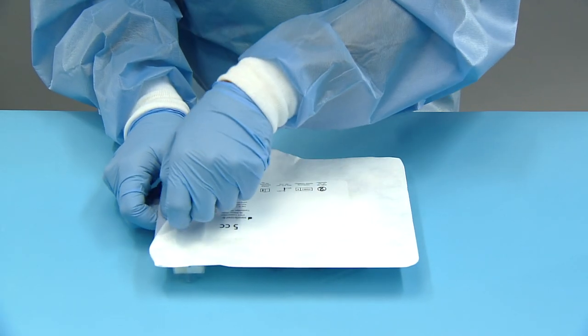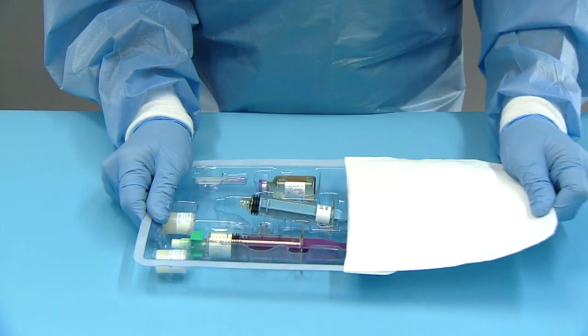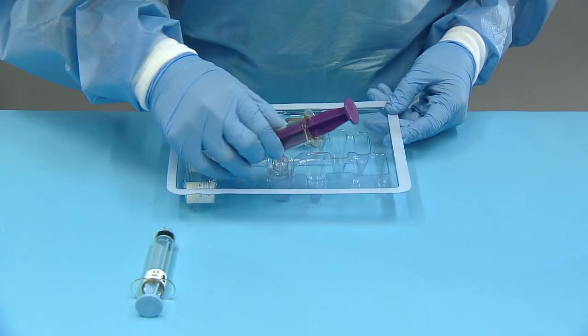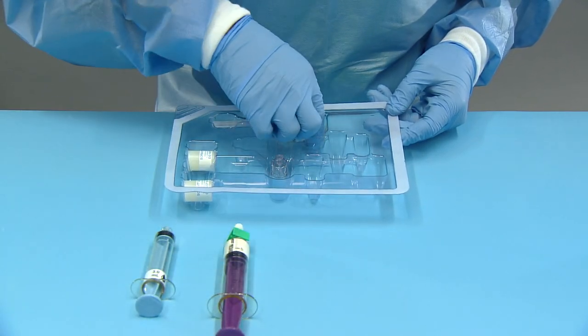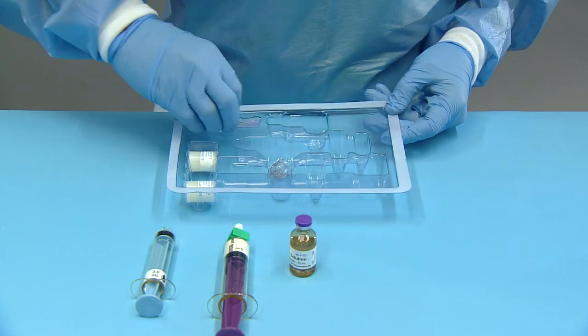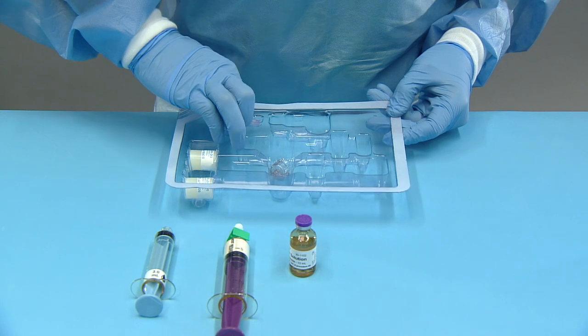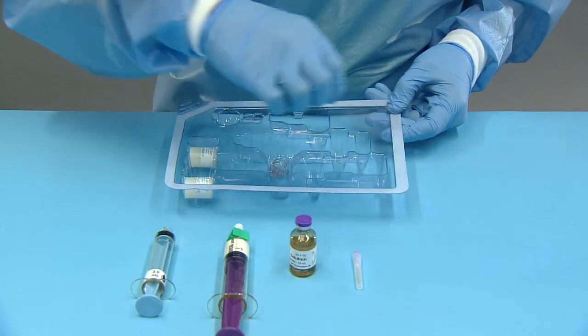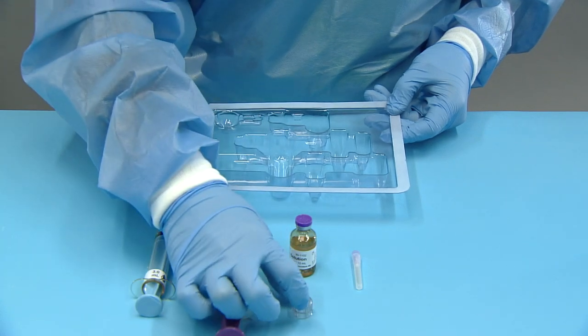To prepare the product, open the pouch and remove contents into the sterile field. Begin the mixing process only when the defect is ready for implantation.